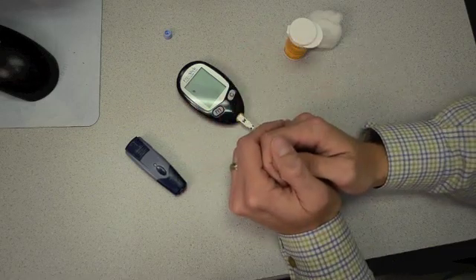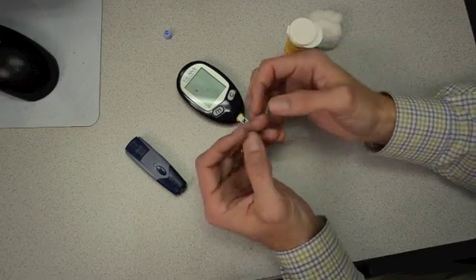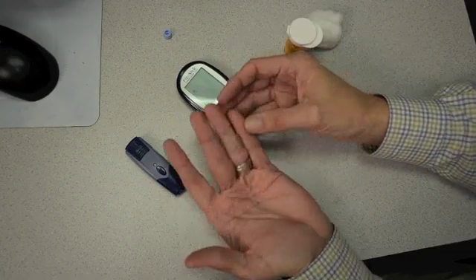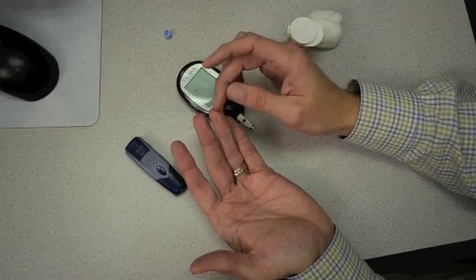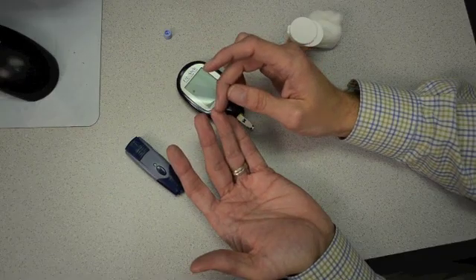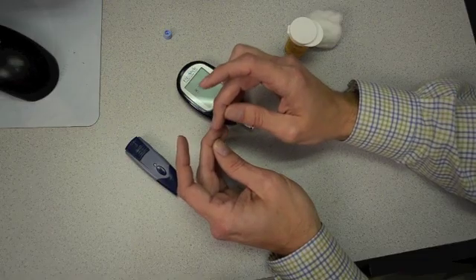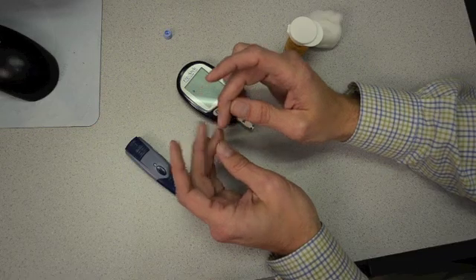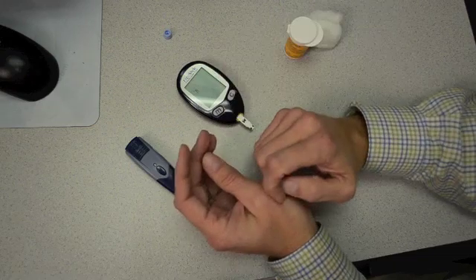One of the biggest issues when I start teaching people how to do blood sugar testing is they say it's been very painful in the past. The first thing I ask is where they're sticking themselves. Most patients are sticking right on the tips of their fingers — we never want to do that, because that's where you have the most nerve endings and it's the most sensitive spot. What we recommend is rotating your hand and sticking up on the sides. I also recommend picking a different site every time you do a stick, which lets your fingers heal adequately and results in less pain over time.